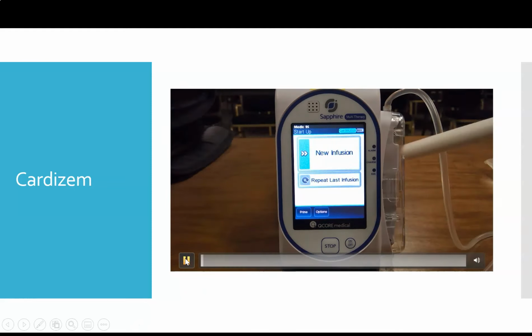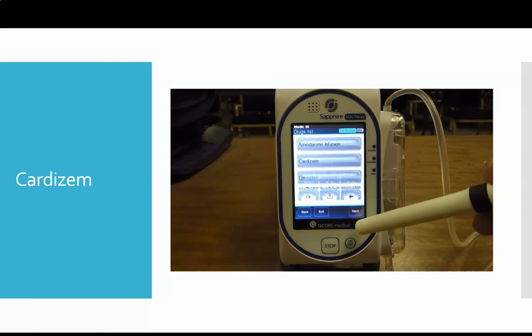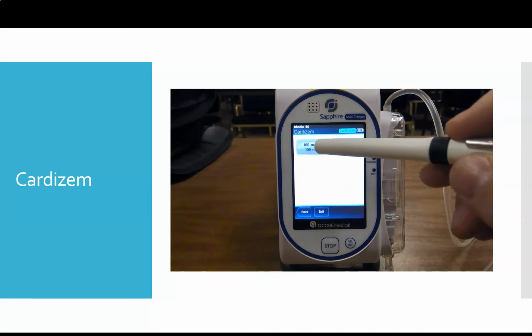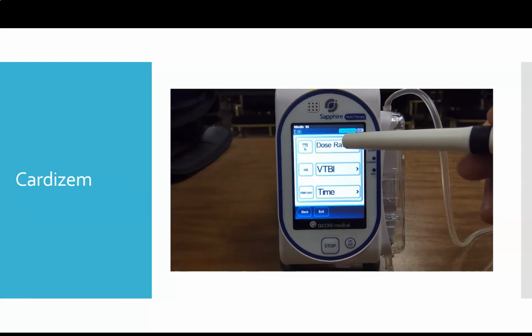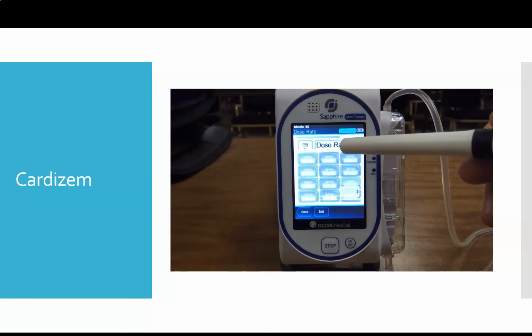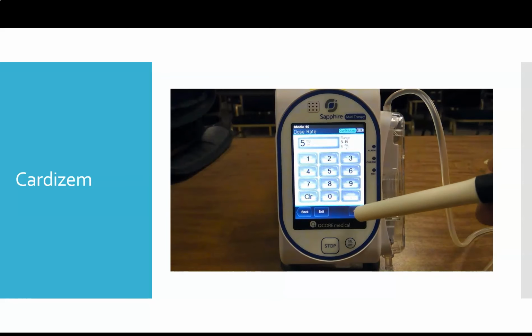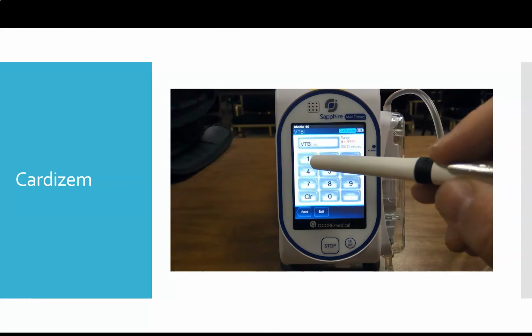So we're assuming that we've already primed our tubing and we have our medication mixed up. We're going to come through here and find Cardizem, 100 milligrams for 100 mLs. Whenever we see the screen, we have to enter in 2 out of the 3 items. So we're going to enter in our dose rate. Even though you're going to give the bolus first, you set up the infusion first. So we set up that 5 milligram per hour infusion.